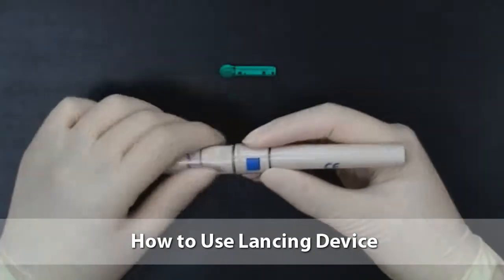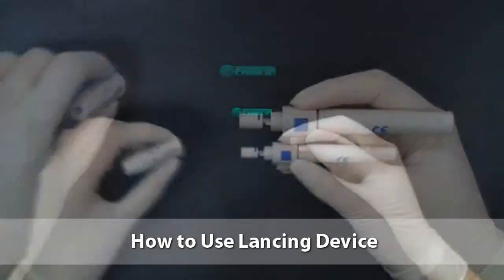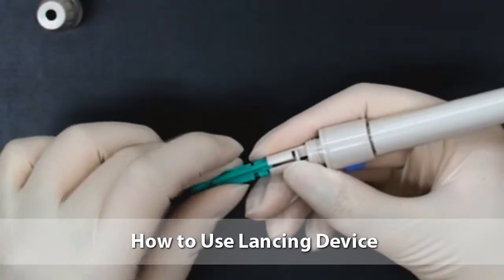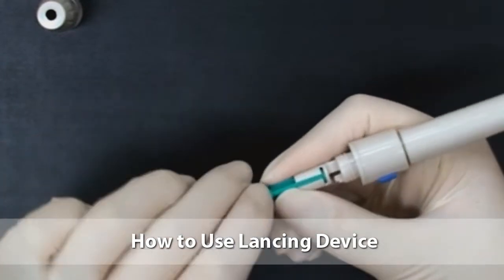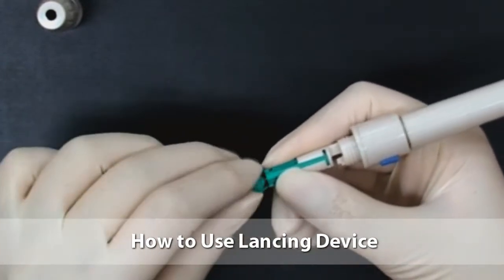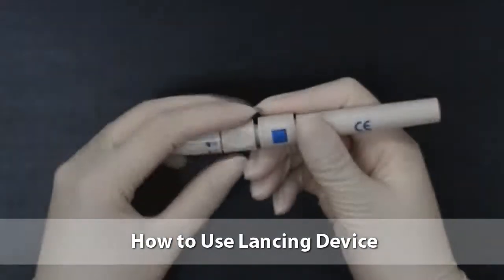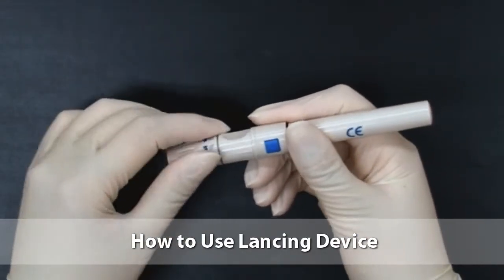If you have a lancing device, assemble the lancet with the lancing device. Unscrew the cap from the lancing device body. Insert the lancet into the lancing device holder and push down firmly until it is fully seated. Twist the lancet protective disc until it separates from the lancet. Screw the cap back onto the lancing device body.